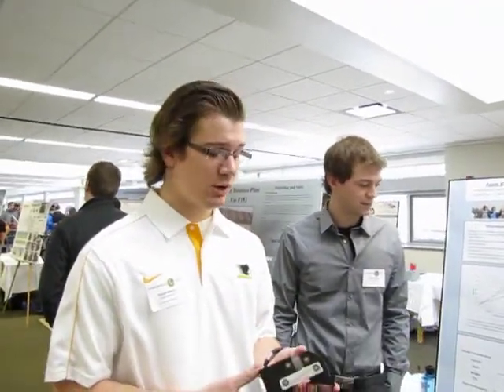My name is Dave Weiland — I'm also in Biomed. As they were saying, our knee is trying to be as affordable as possible. We reduced the price down to about $45, and our customer really liked the design. He thought it was sleek, very affordable, and the flexion was perfect for the Indian lifestyle. Overall he was really happy, and we look forward to sending him a new prototype for testing in India.